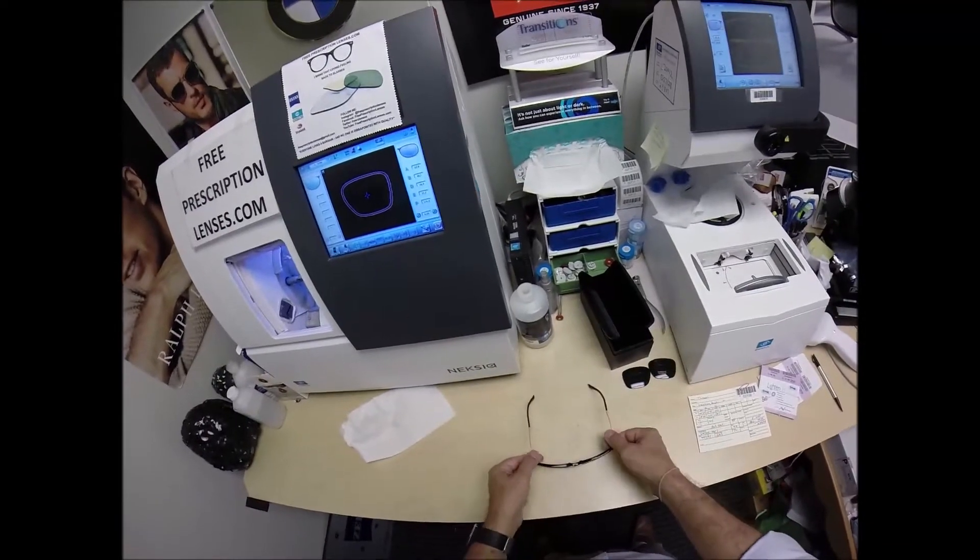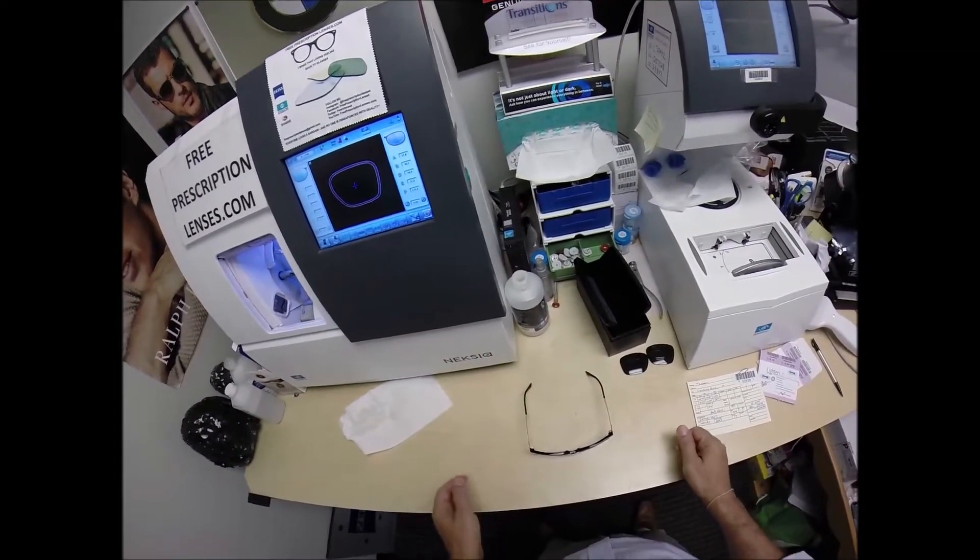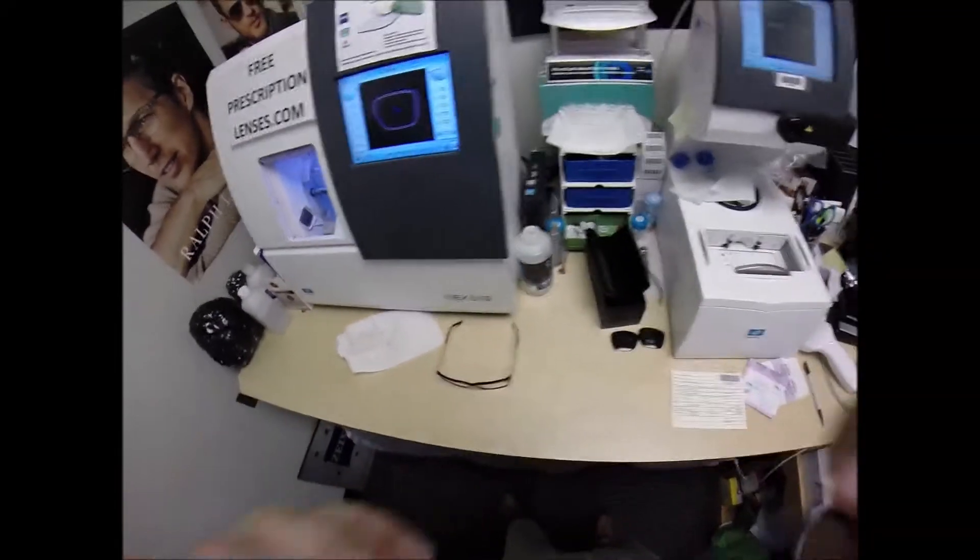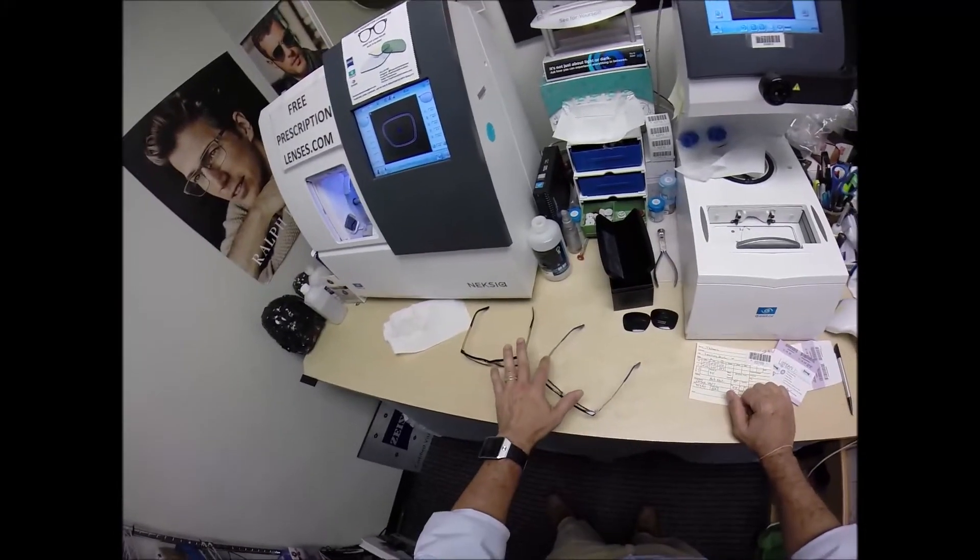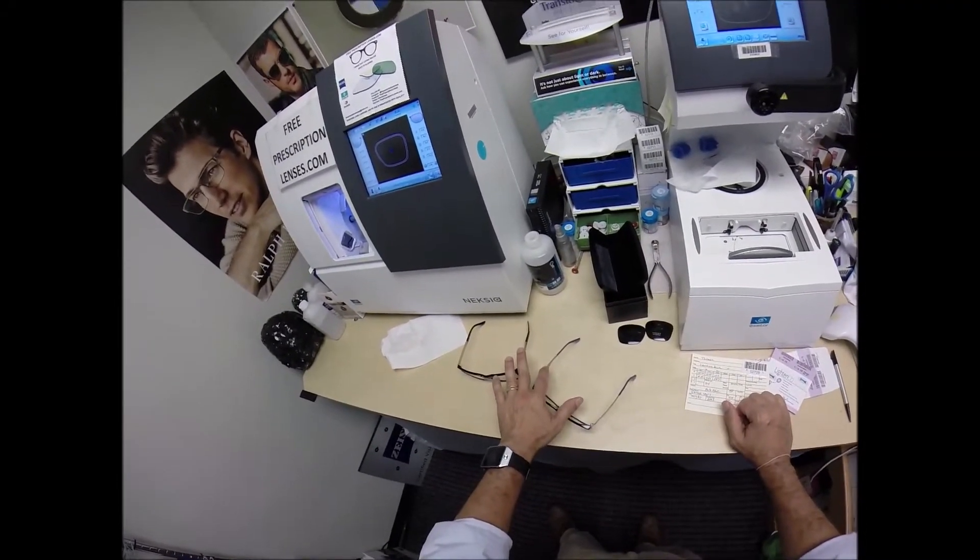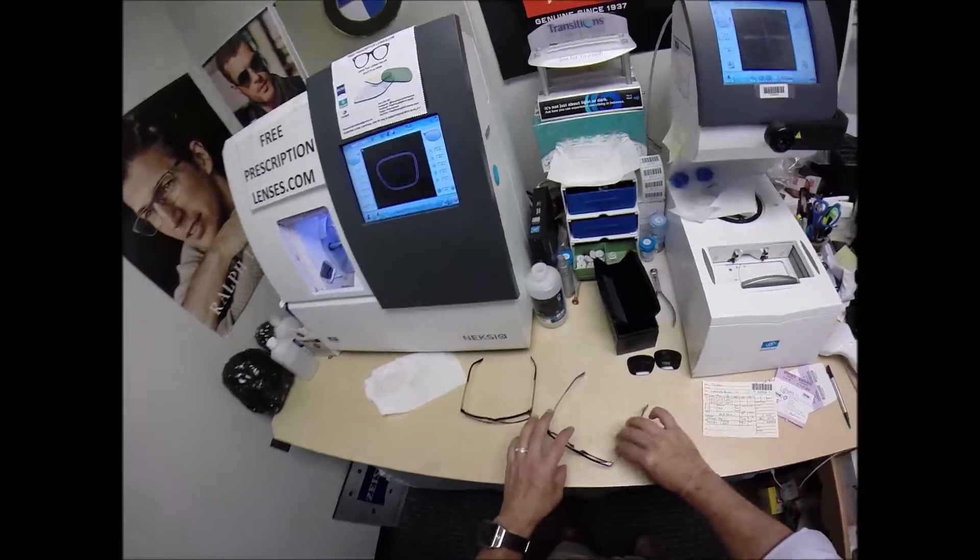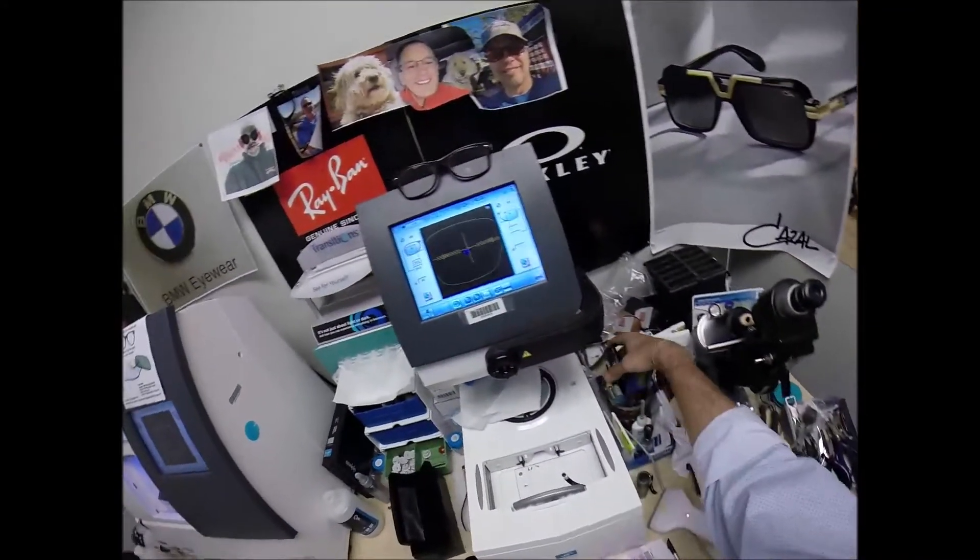And because of that statistic, 99% of all optical shops will do free adjustments if you ask them, but I'm going to get them in standard alignment first, also known as a three-point stance. This is the last step of the inspection. The three points are one, two, and the bottom of the frame being three. I set them on the counter and press down. There is no wobble.